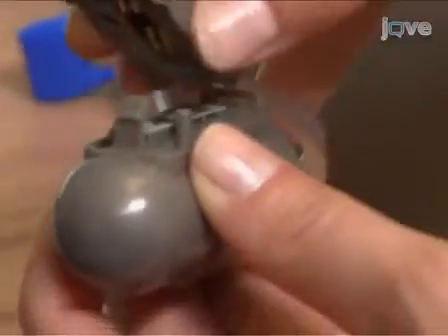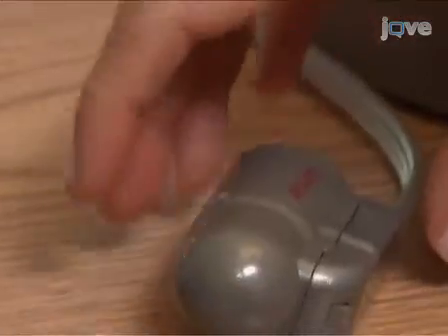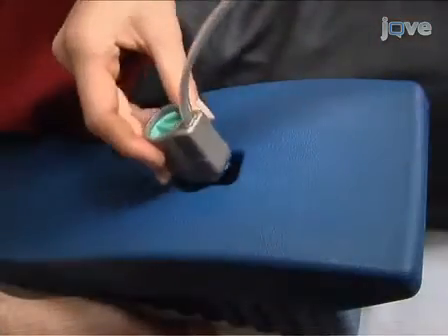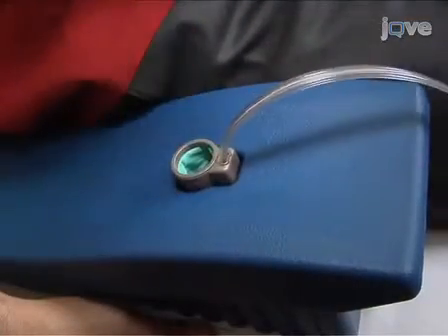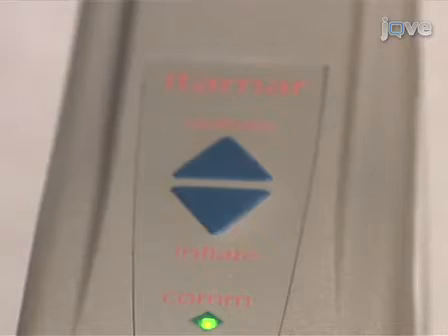Next, select 2 new PAT probes and connect them to the pneumoelectrical tubing by inserting the connector tab into the probe until it clicks. Finally, insert the probes into the sockets of the arm supports and press the deflate button on the top of the EndoPAT 2000 device. The system is now ready for experimentation.